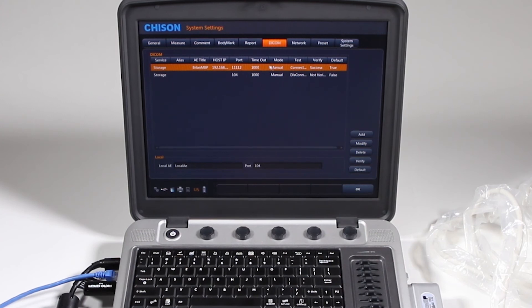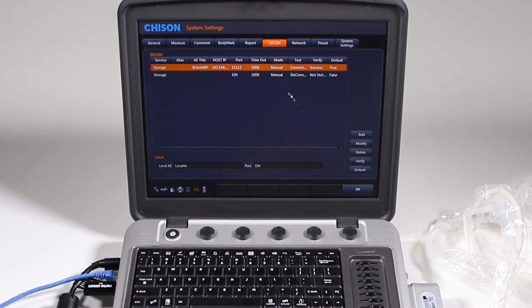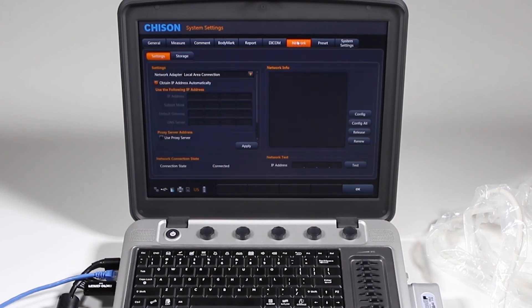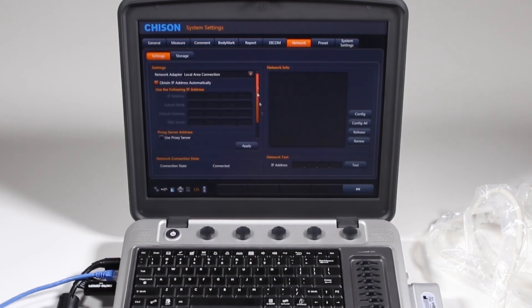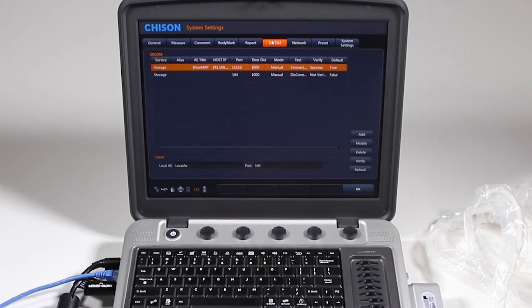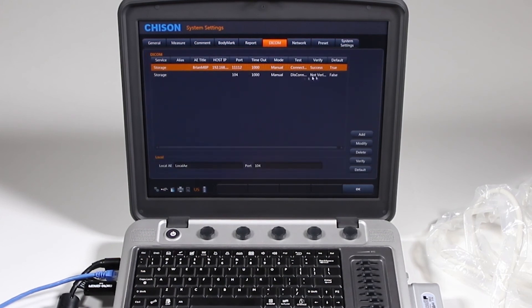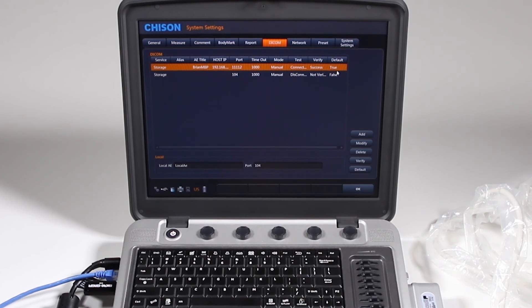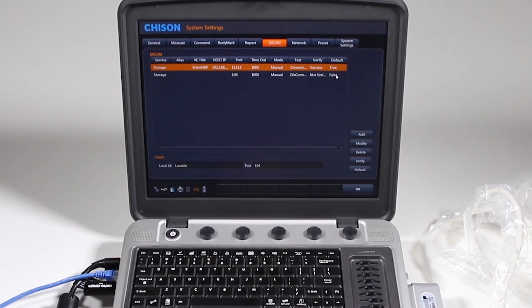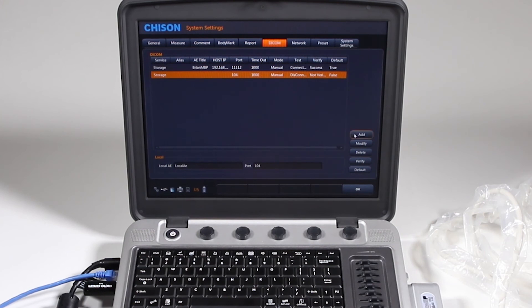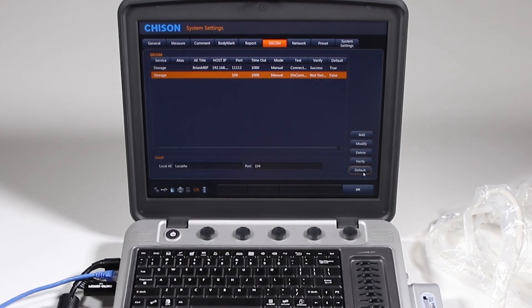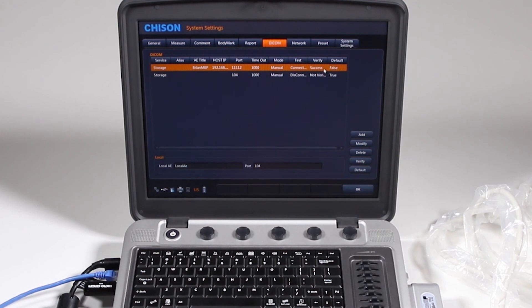So if you do not get this verify, something is incorrect in your settings. If you were able to hear on the network, if you were able to ping and it says it's connected, but you get to this point and it says it's not verified or disconnected, you're not going to be allowed to send anything over the network. This default true is saying what is the default DICOM server you want to send it to. You can just click here and swap them back and forth.